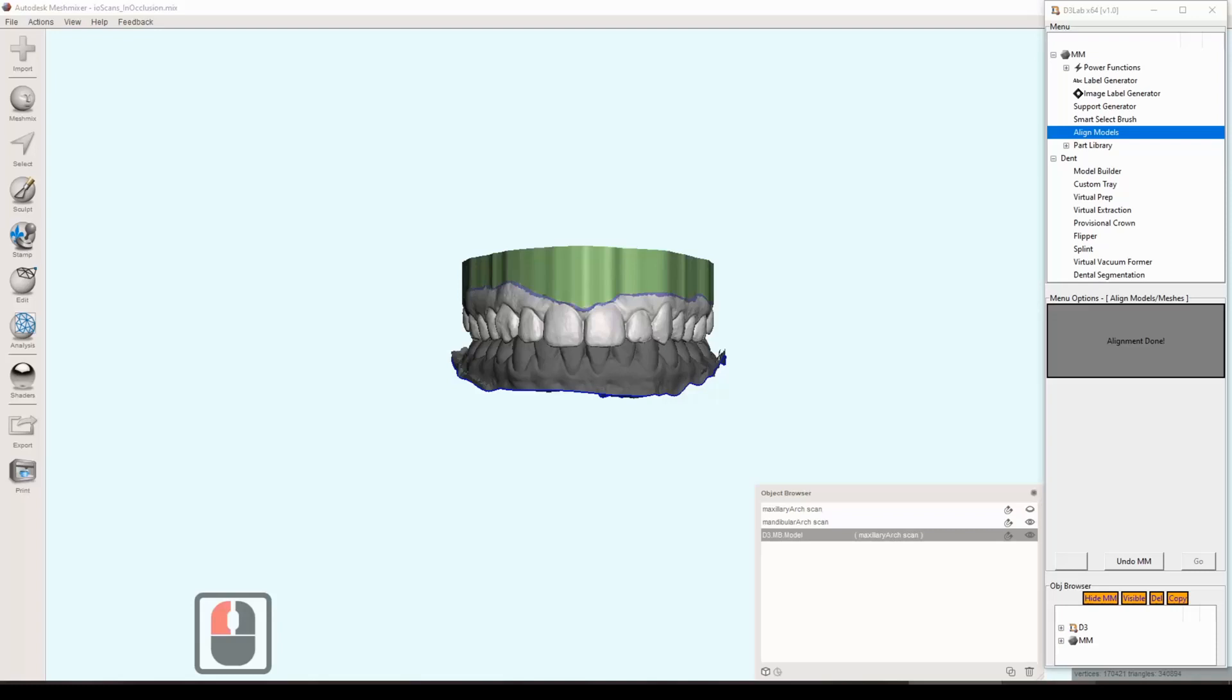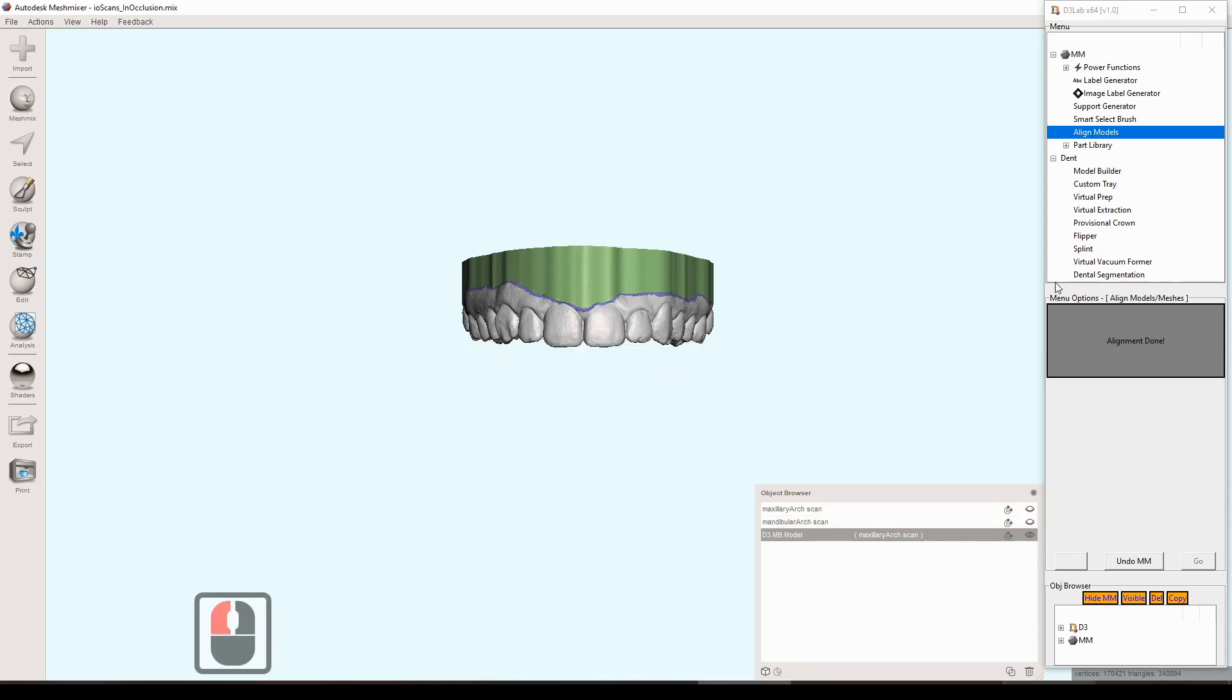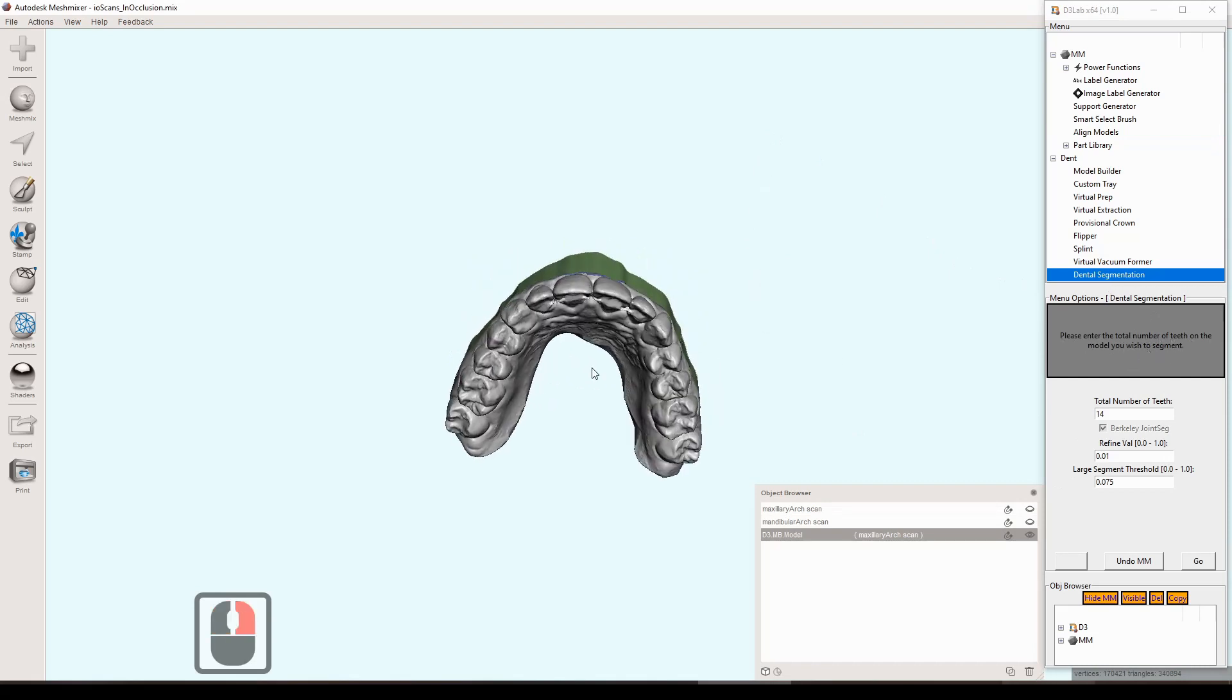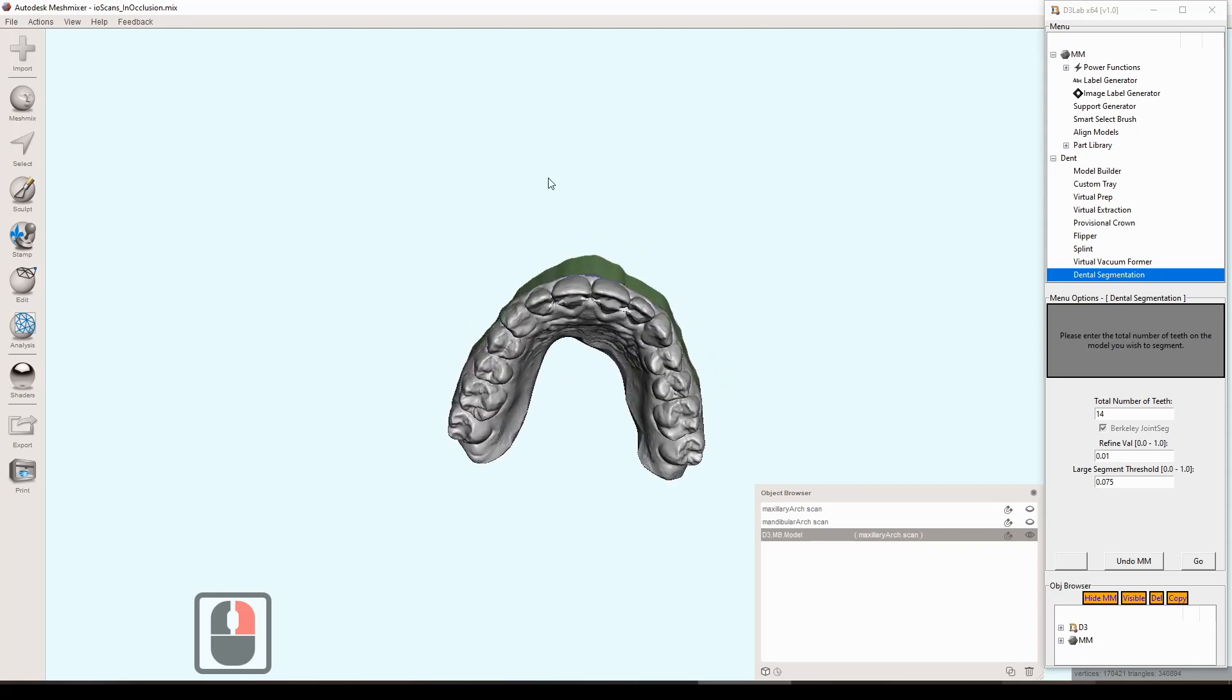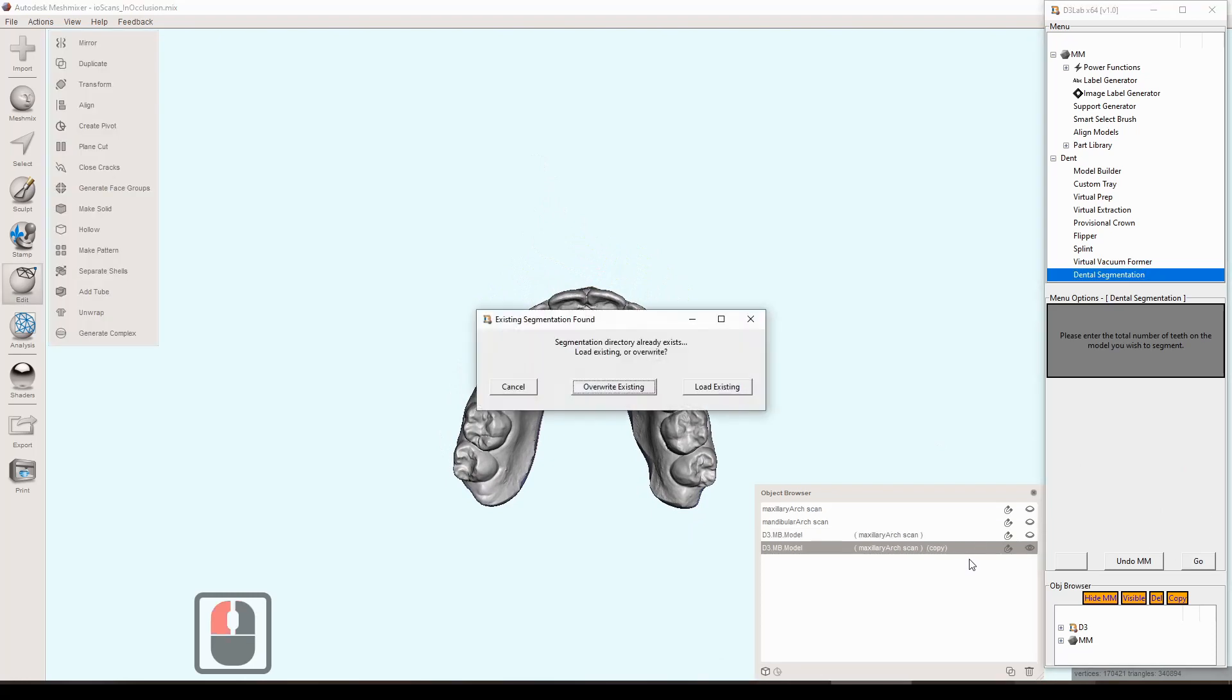So that's our starting point and we'll just go through the tool. With that model active I'll go ahead and click on the dental segmentation tool that's on the right side down at the bottom and it presents us with a few options here. Mainly the only one we need to consider is how many teeth there are. In this case there are 14 and that's the default value. The other two parameters we don't really need to get into right now, those are just more advanced parameters that we can toy with later.